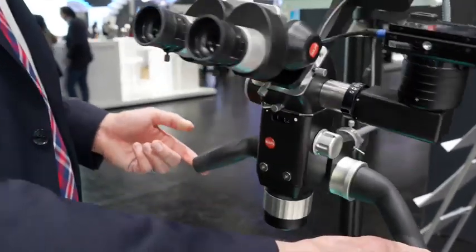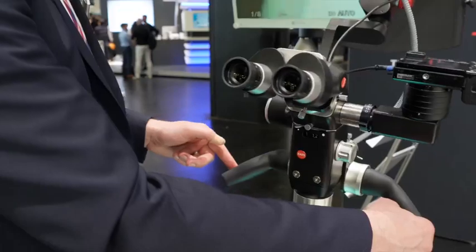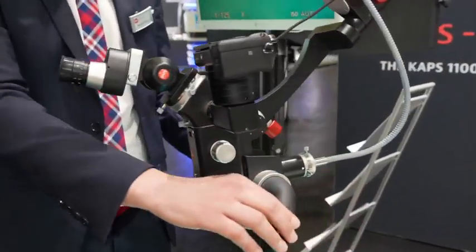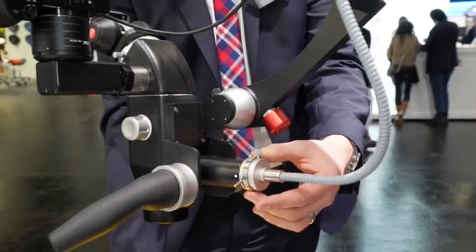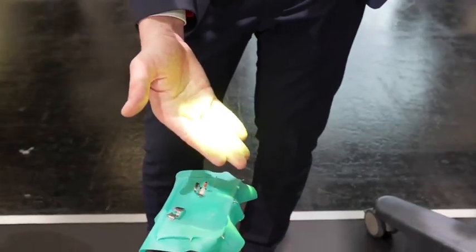The Black Edition is equipped with our ultra-smooth balancing axis. A new feature now available in the Black Edition and even in all other microscopes is our double filter. We combine the orange one for composite and additionally a green one which is needed for surgical applications.